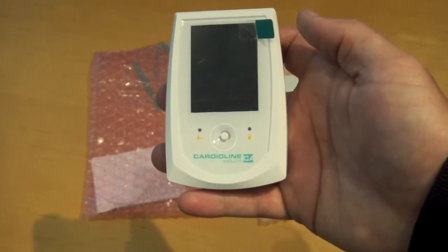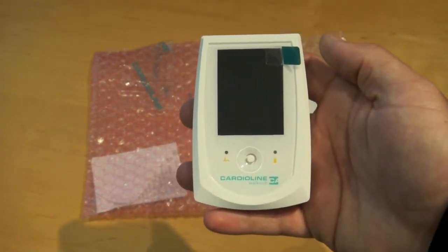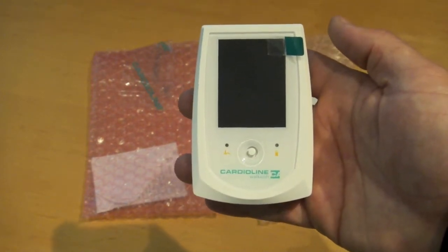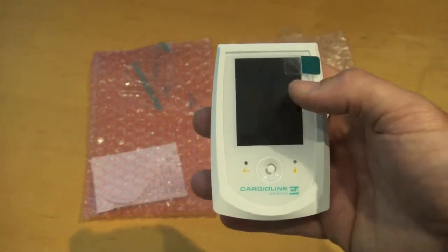There are two advanced features it adds. One is voice recording — the physician can, instead of programming the recorder prior to testing, simply record a voice note that states the patient data, date of birth, and all of the necessary information that the physician would need at time of capture.